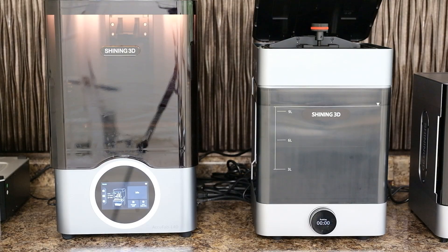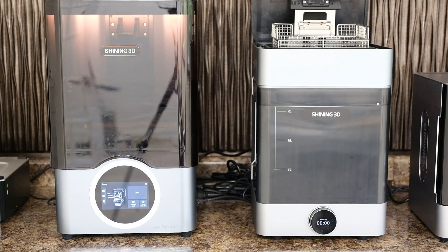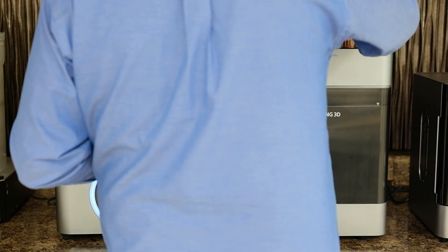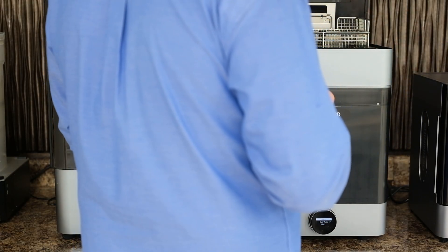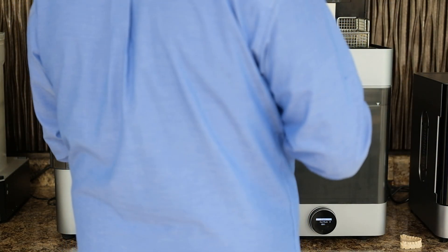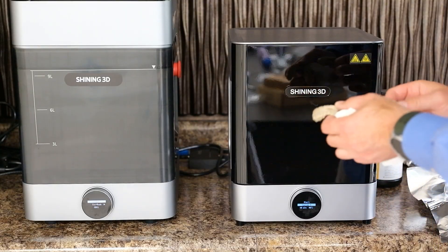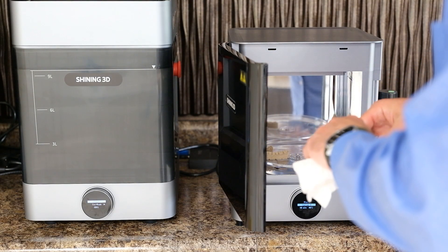When the washing cycle is complete, the unit will automatically raise up the print. This serves an important purpose — so the alcohol can drain away from your prints. You want them to be dried of alcohol before you put them into your curing station. Sometimes if I'm going to pull them out of the tray a little early, I'll wrap them in a clean paper towel and give them a good shake to get the alcohol off. You don't want to rub them because you haven't put them in for their final cure yet — just get any excess drops of alcohol off.